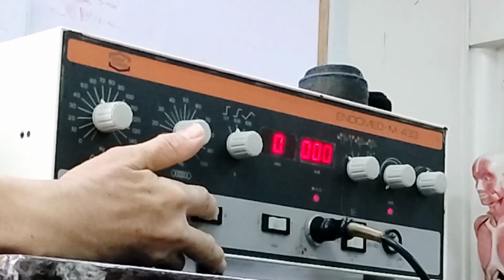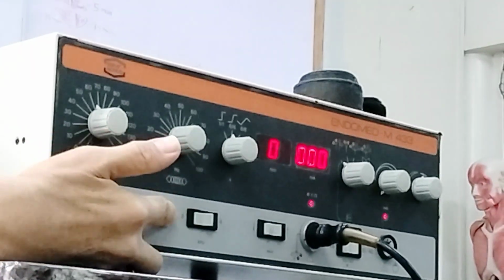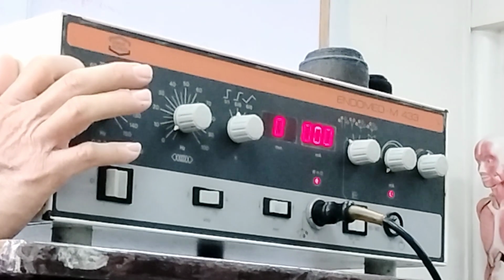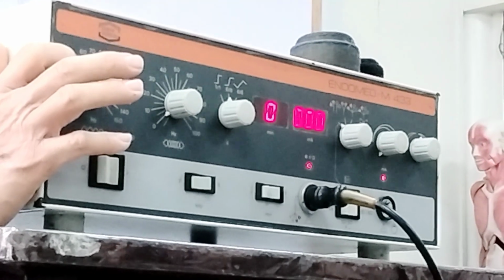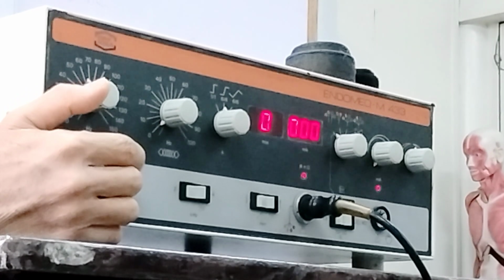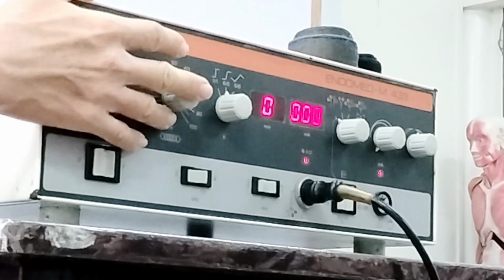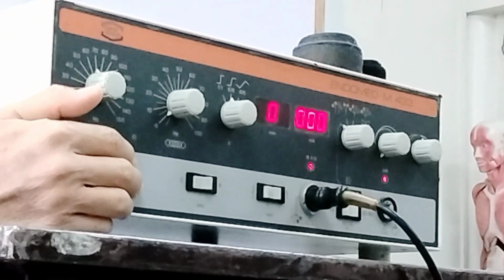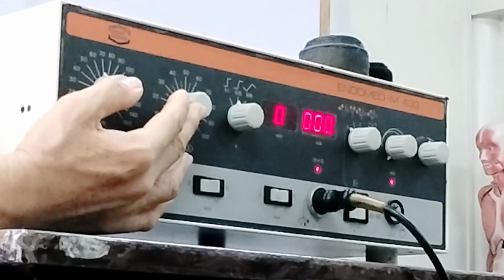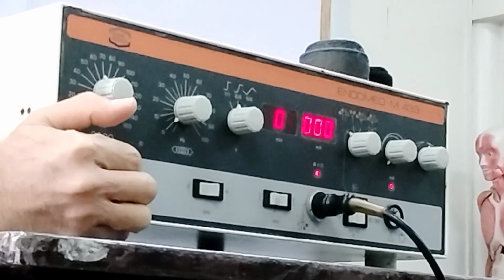If you place this to 2 kilohertz or 2000 hertz, and you place it at 60, that means the other medium frequency current is 2060 hertz. So now, as I have mentioned, you're going to adjust the other medium frequency current. The question now is, what are those values that you're going to adjust for your beat frequency or your AMF? One of the sources, I have mentioned, is the lecture.